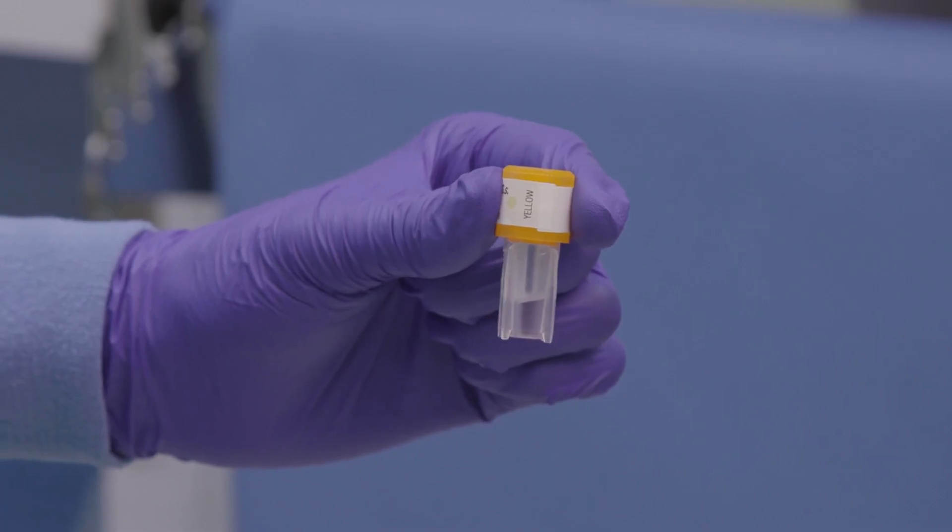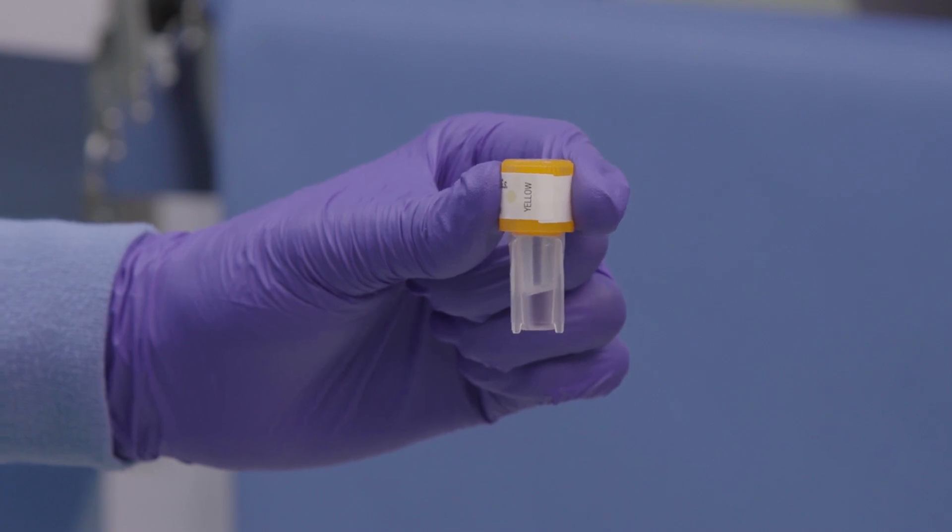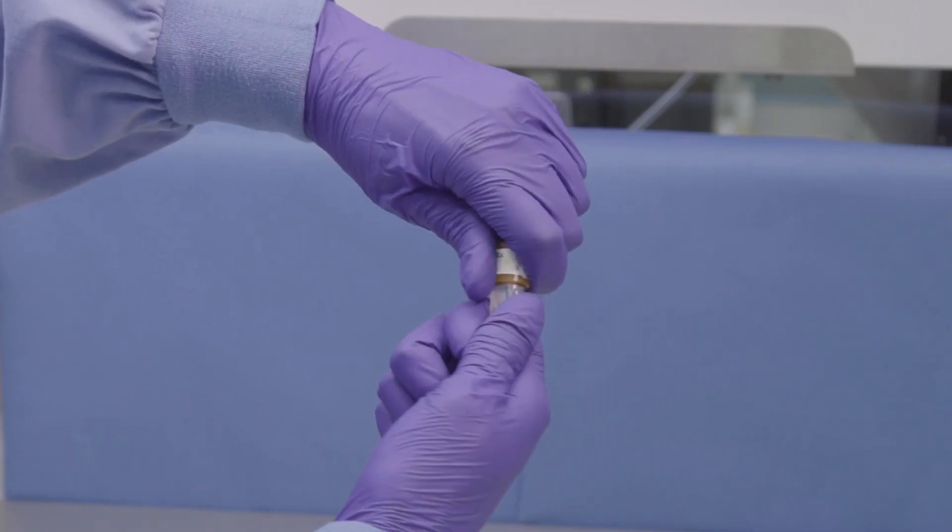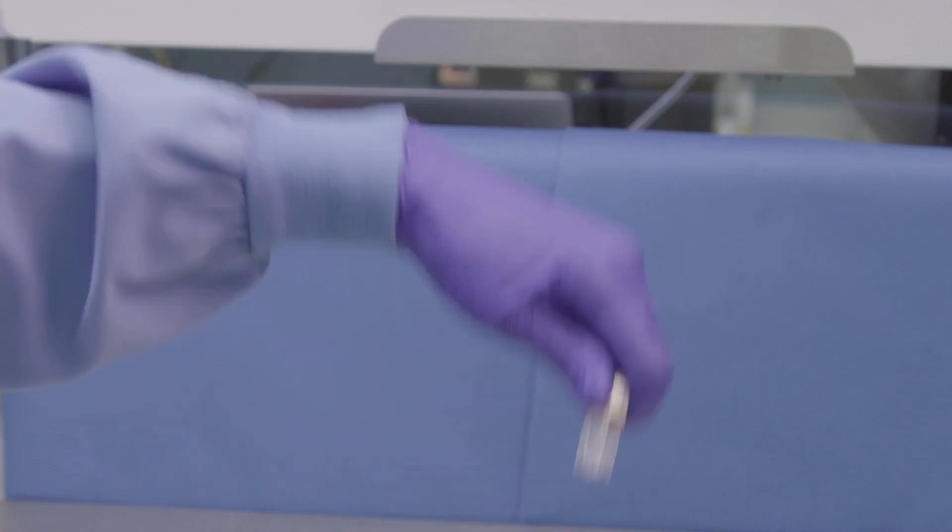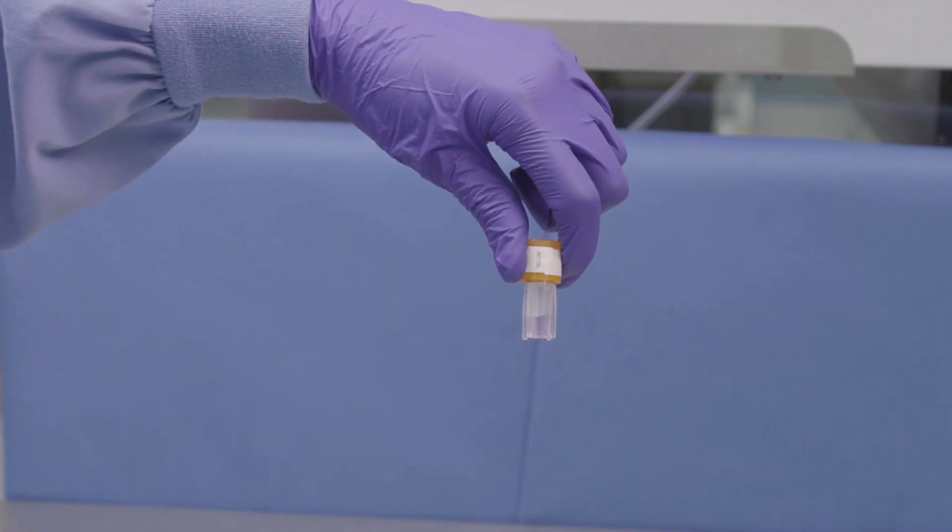Ensure media has come in contact with the spores on the bottom of the vial and the cap is seated tightly. You may need to retwist the cap or flick the vial an additional time if the media did not transfer.